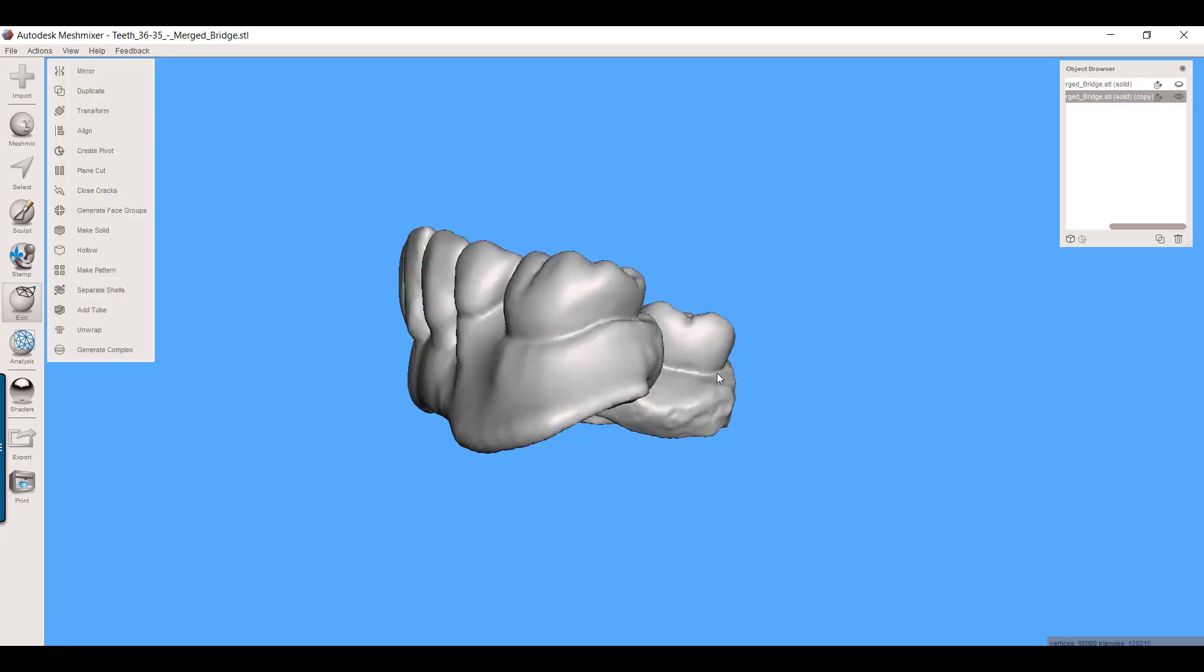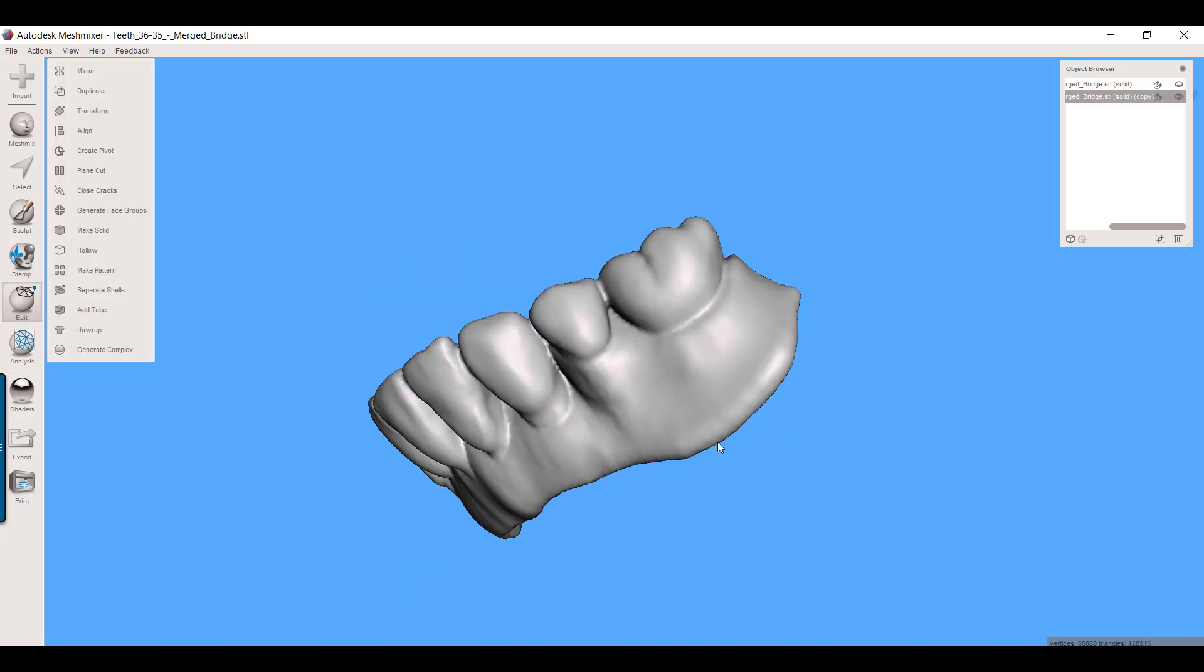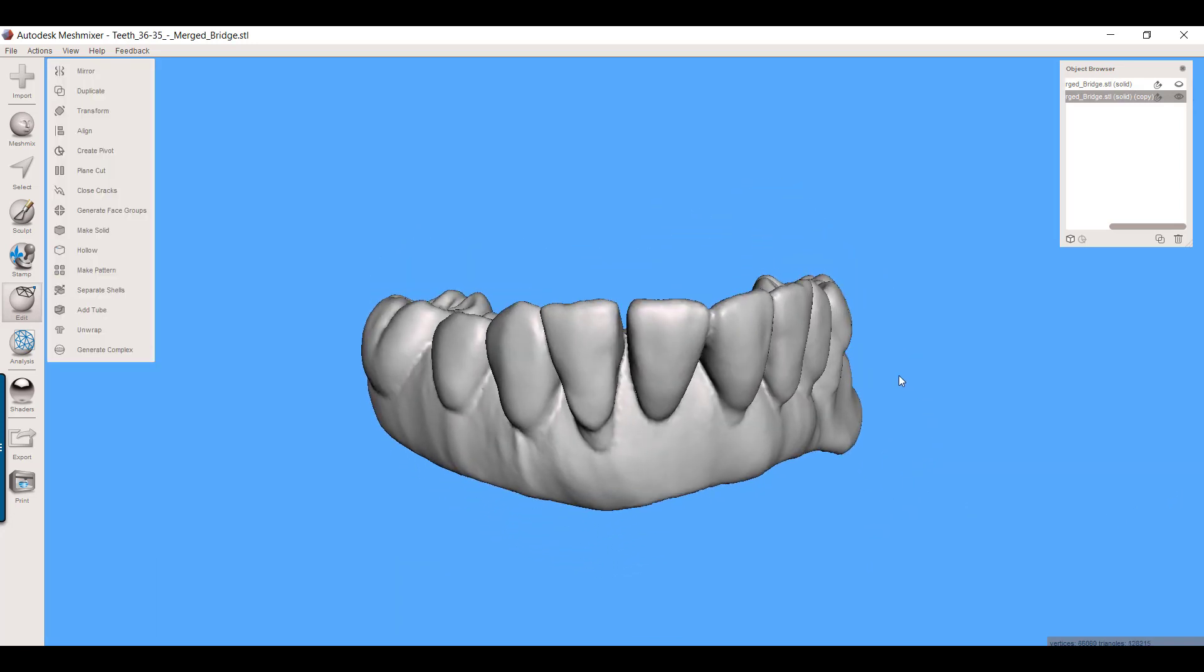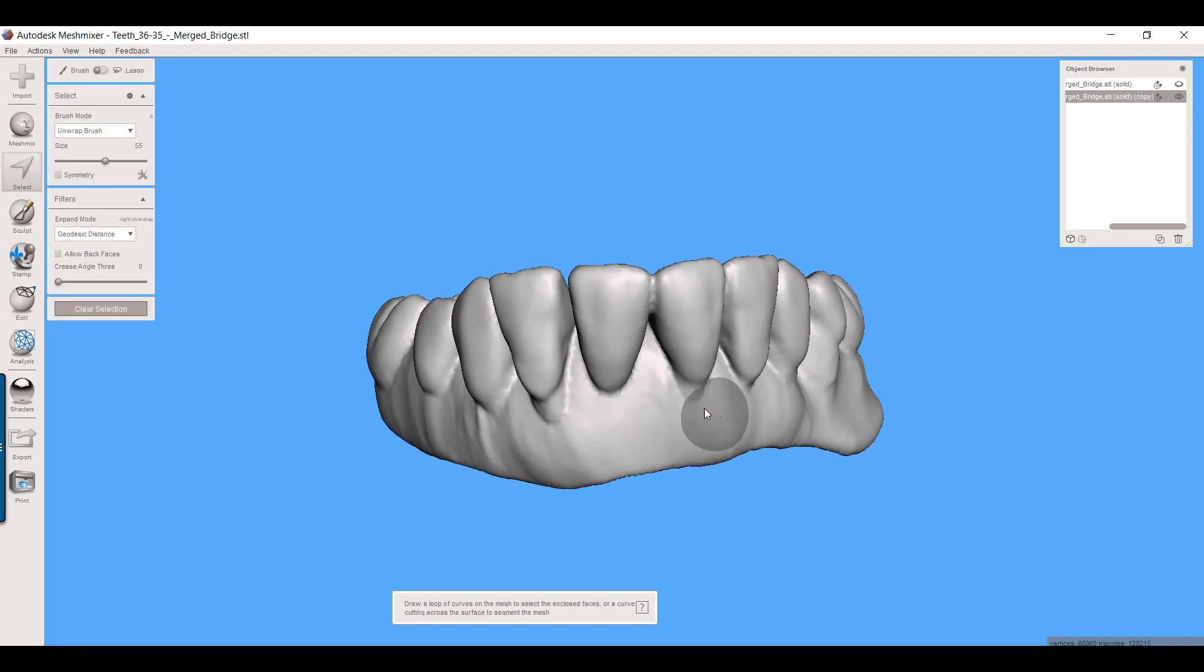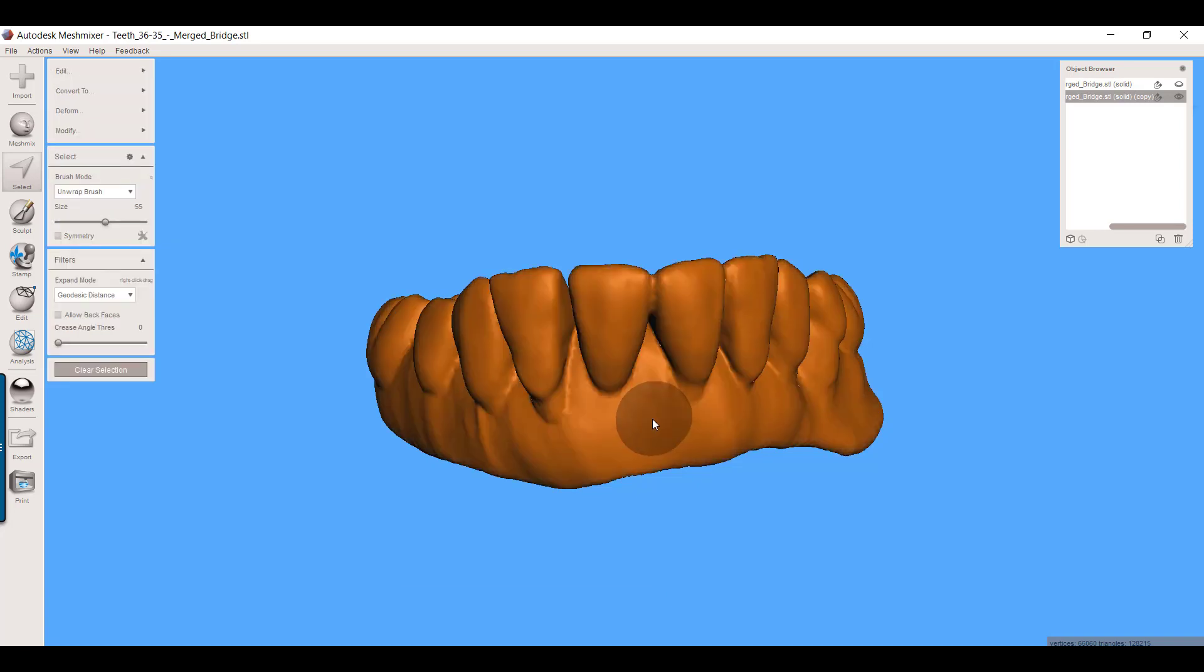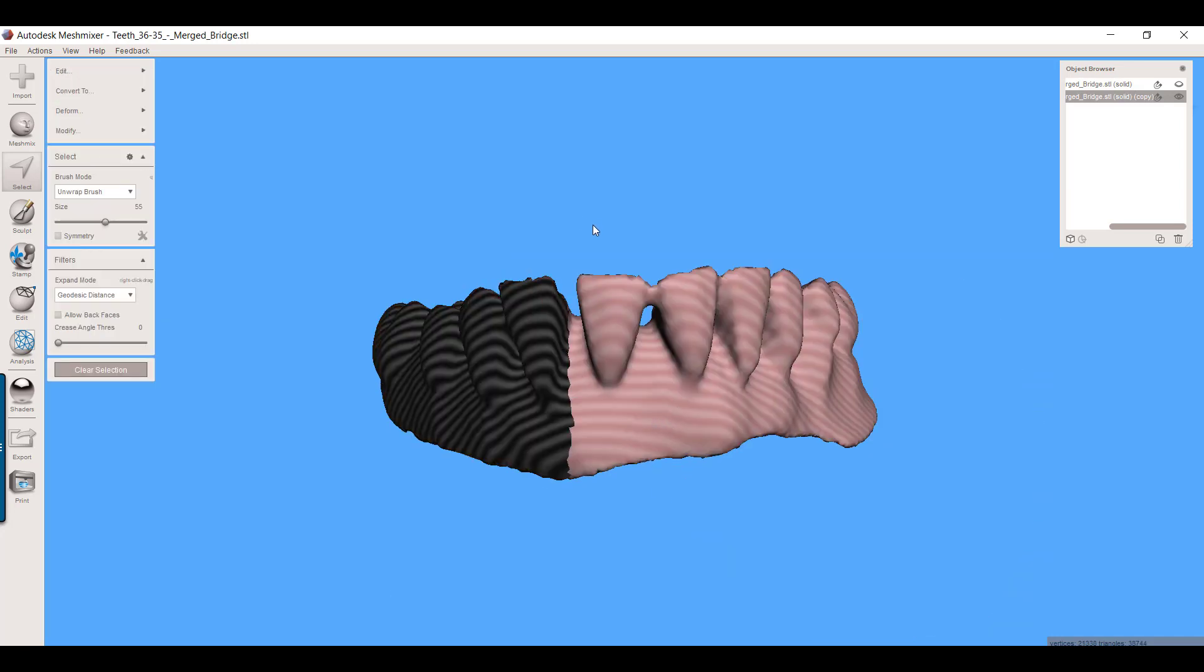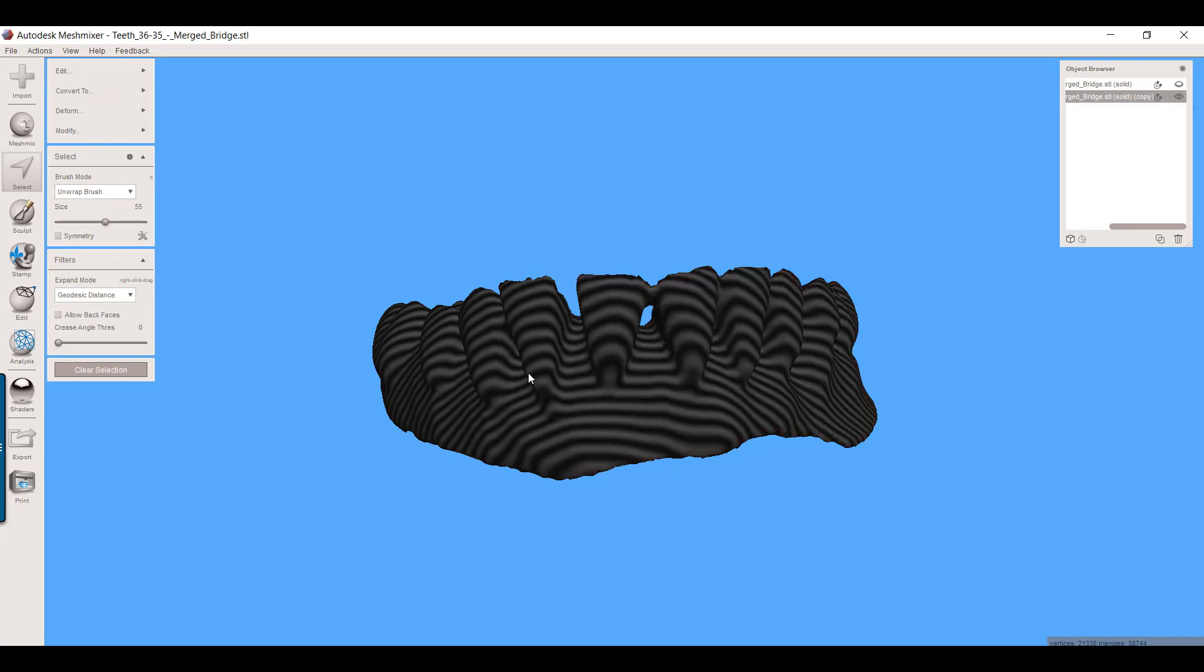Again, this looks like the unchanged temporary. What I'm going to do now is use my select tool. There's two shells that exist here, an inner and an outer. I'll double-click the outer one and then just push delete on the keyboard, leaving me this inner shell. I can select all of that. So this is the inner shell. This is basically been shrunk in all dimensions by 0.5 millimeters.